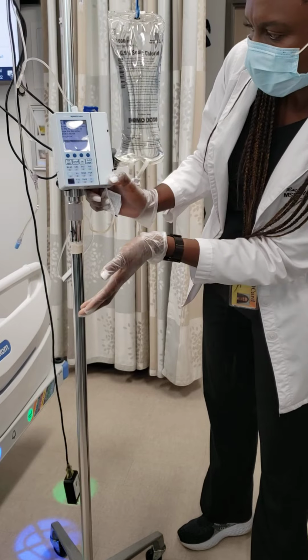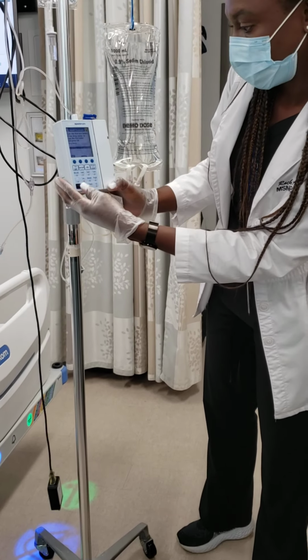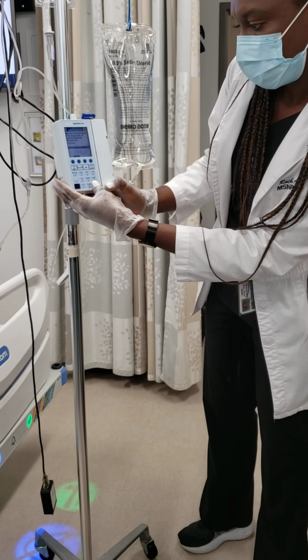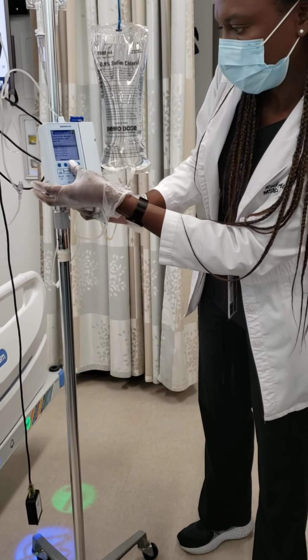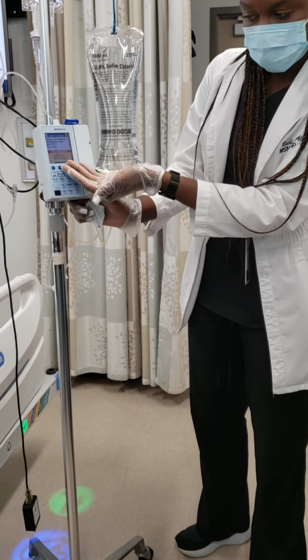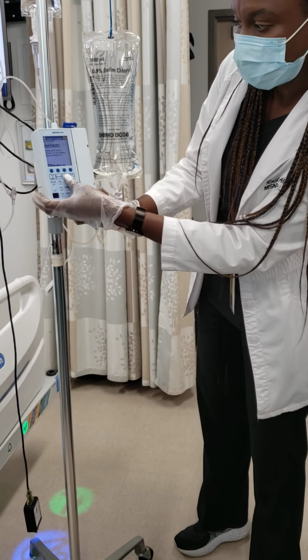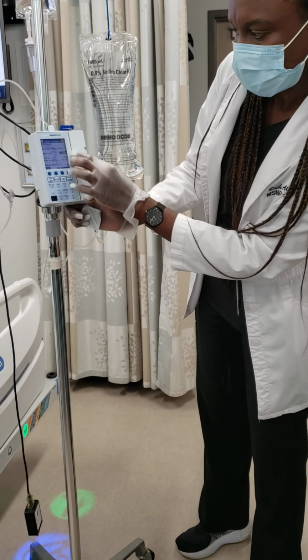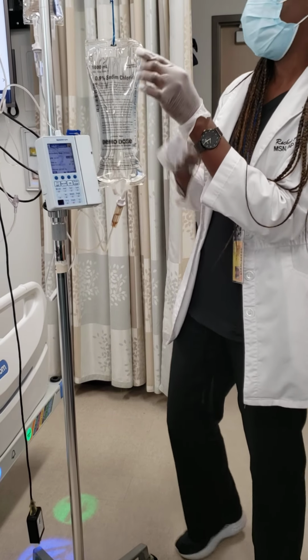You press that, and then you want to hang, let me just say vancomycin again. That could be a nice piggyback antibiotic. Okay, so I'll just put the same rate as well. And it's asking you, is it that medication? Yes. All right, and now it's primed, and it gives you the rate and everything there as well. All right, so I'm going to show you.